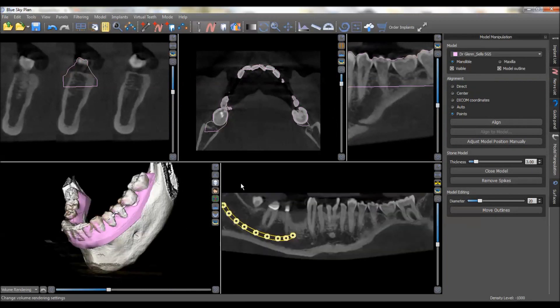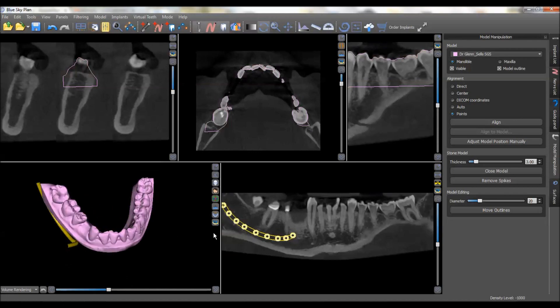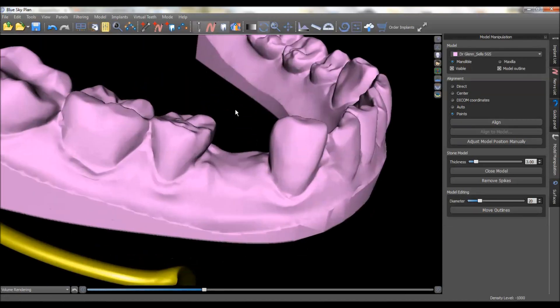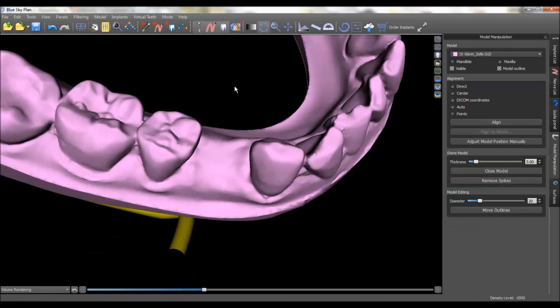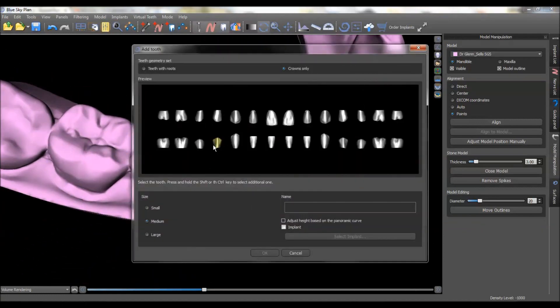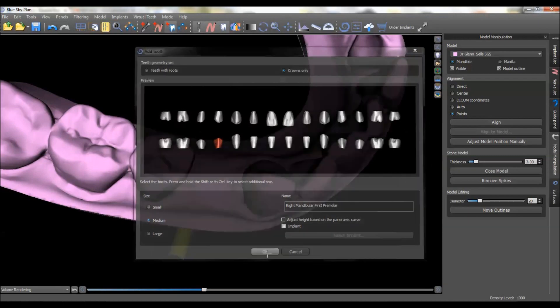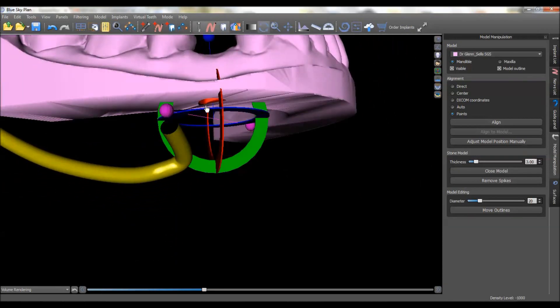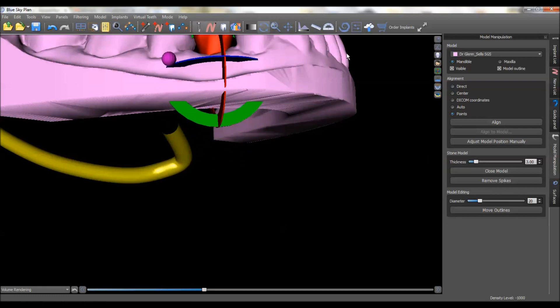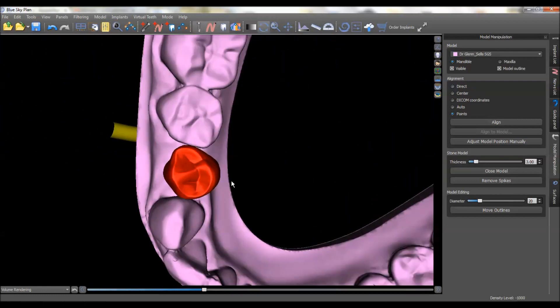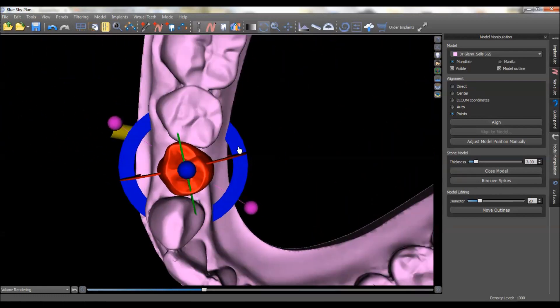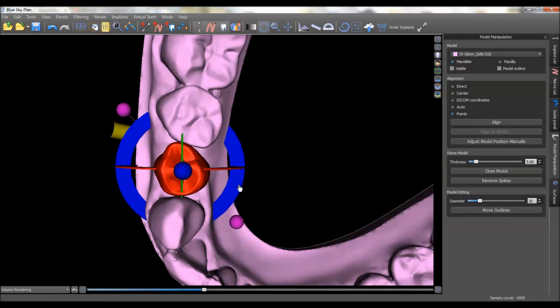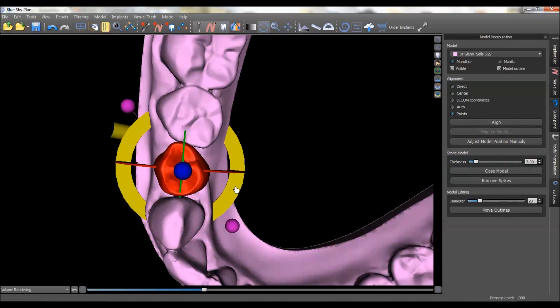At this point we don't really have any need of the 3D rendering to be on, so we can turn that off. The next step would be to go ahead and stick a prosthetic tooth in there. You can choose to do this if you like — you could also import a CAD/CAM designed restoration if you wanted to. But these little widgets allow you to just stick a tooth in and it gives you a rough idea of where the tooth position is going to be.